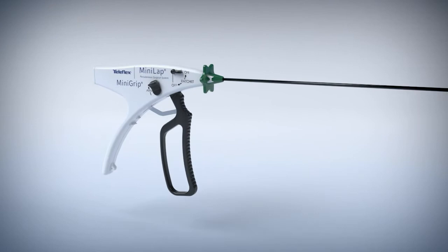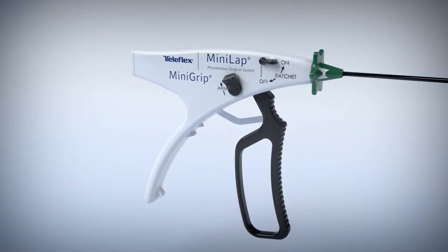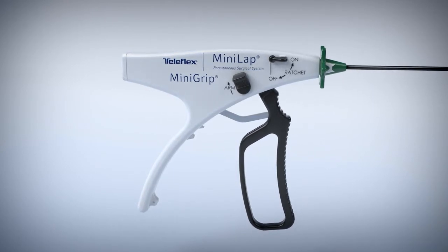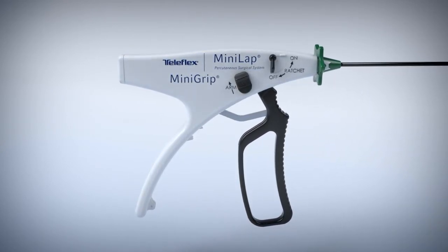The ergonomic multifunction Mini Grip Handle makes it easy for surgeons to grasp and manipulate tissue while providing both ratcheted and non-ratcheted capabilities.